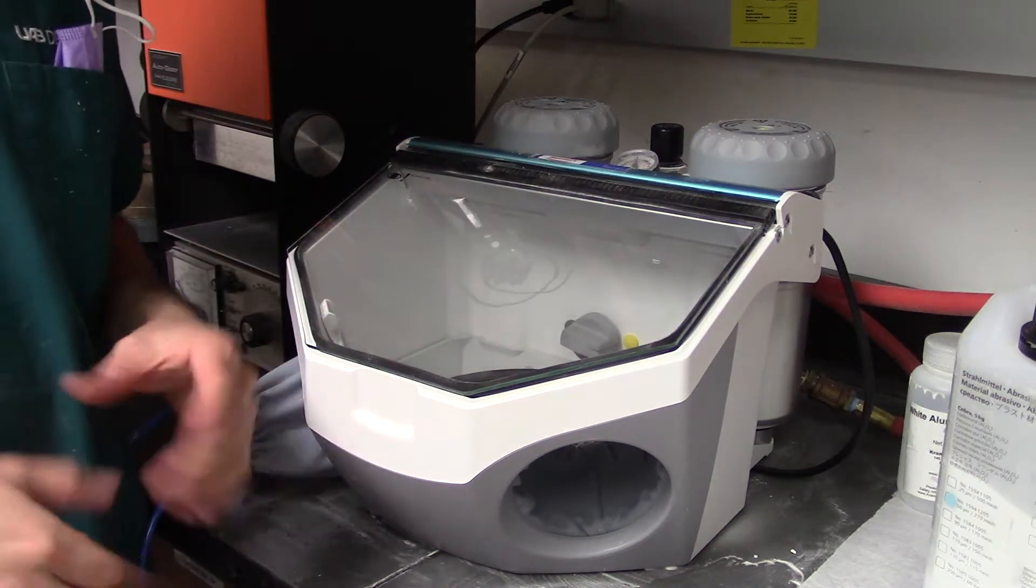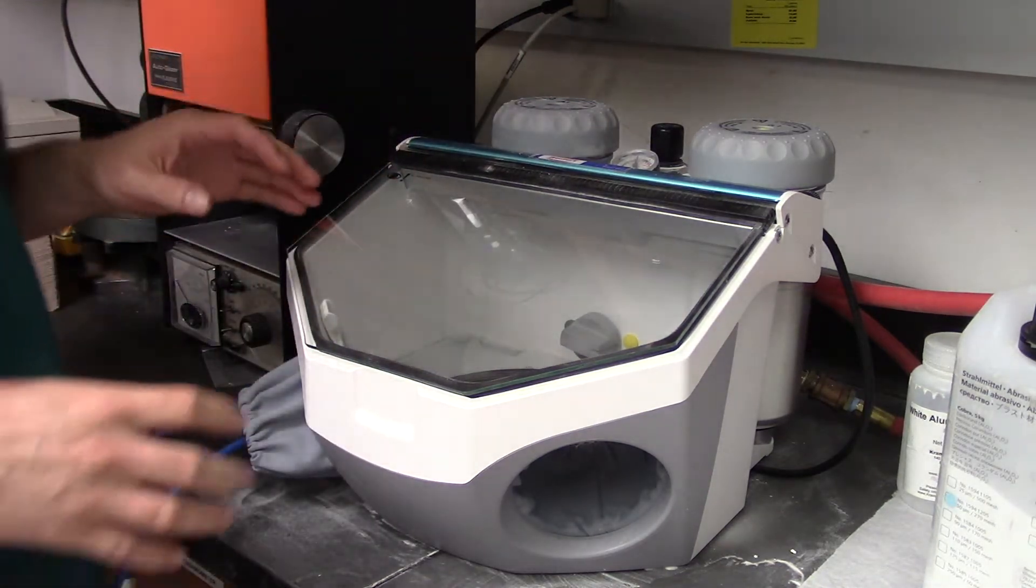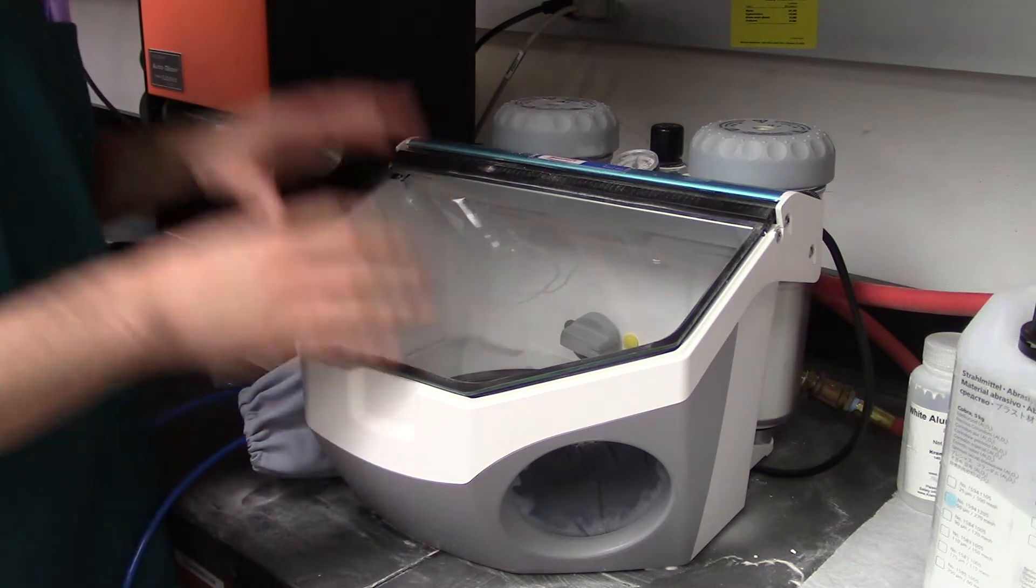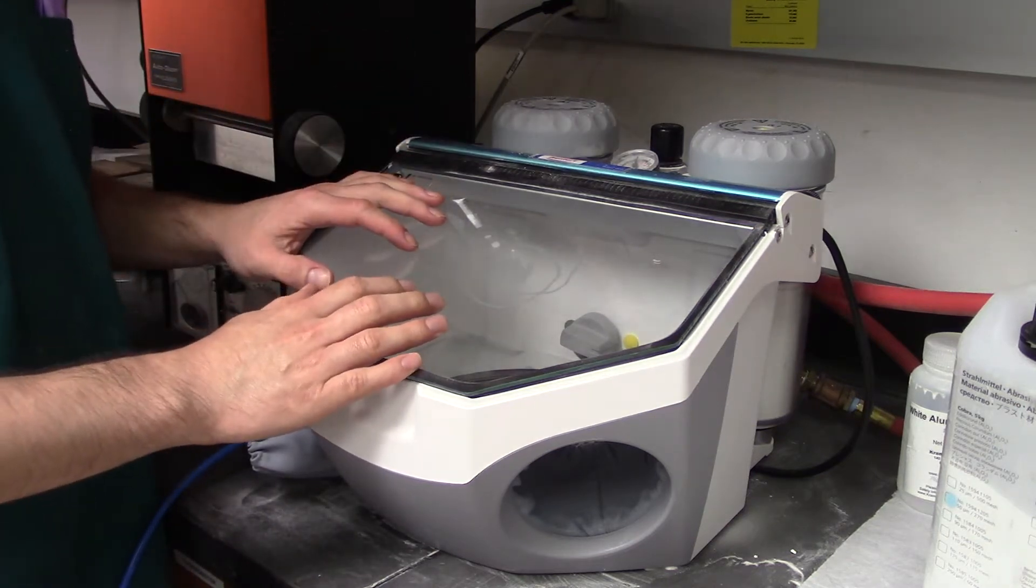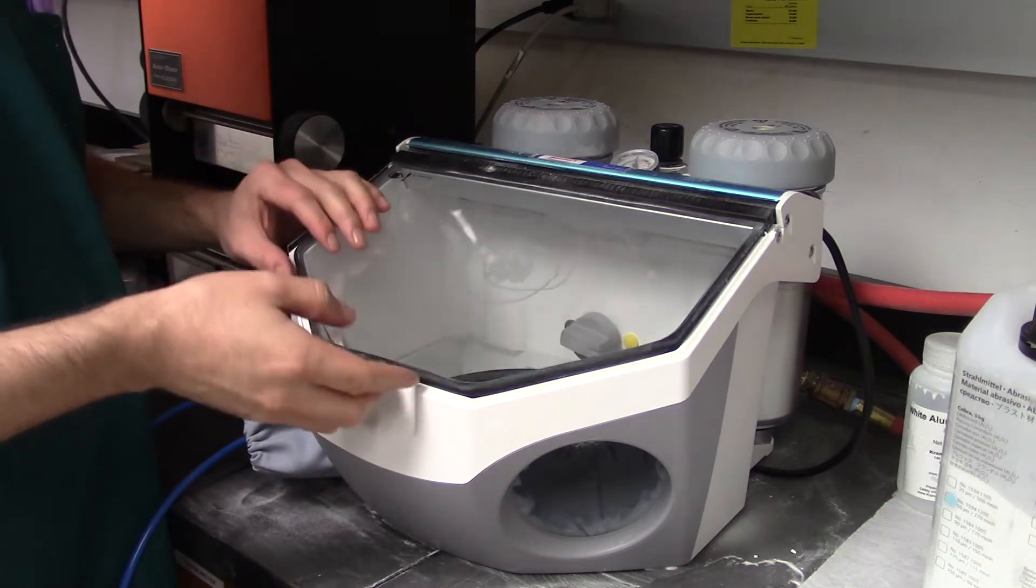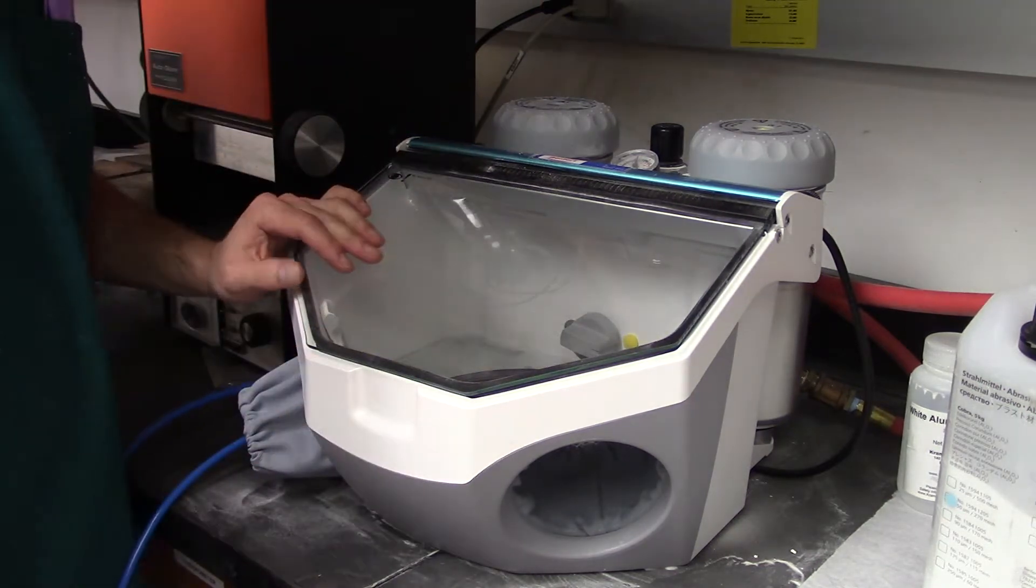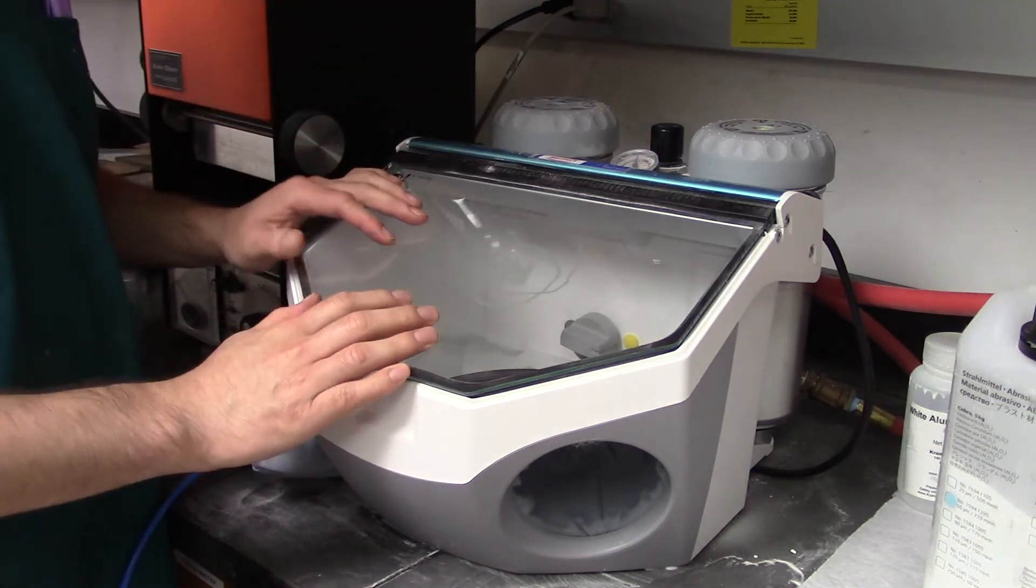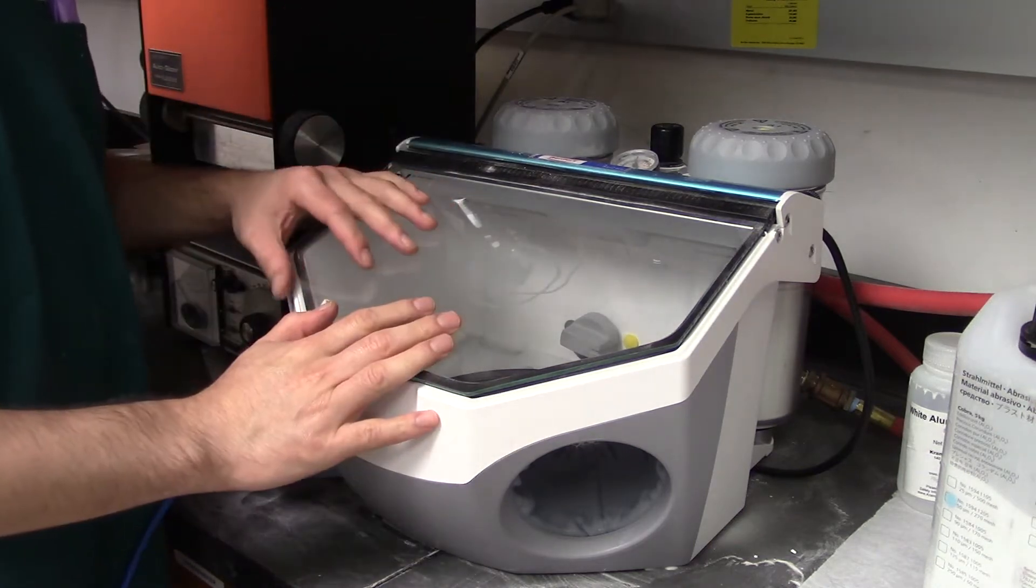This is another piece of equipment. This isn't just for research. This is something used in a dental laboratory for making crowns and stuff. This is a sandblasting unit. So what a sandblaster does is it allows you to particle abrade or sandblast different types of ceramic materials or any specimen we want to sandblast.